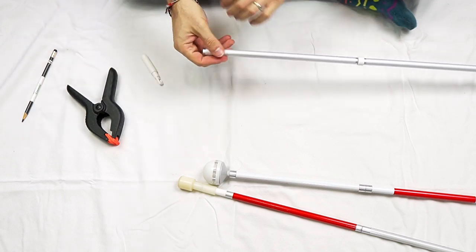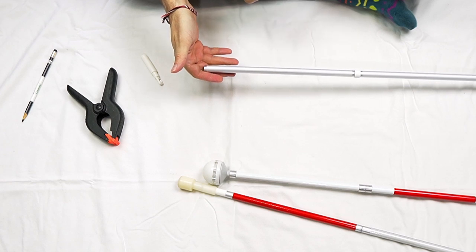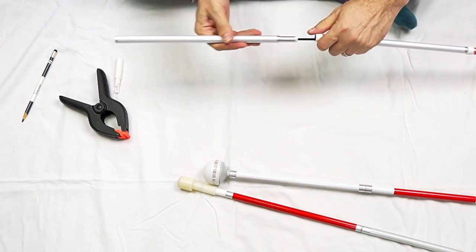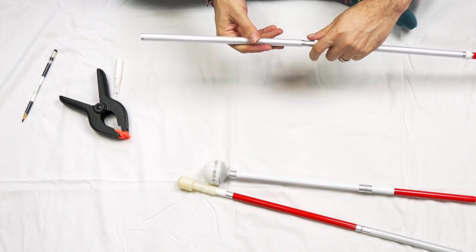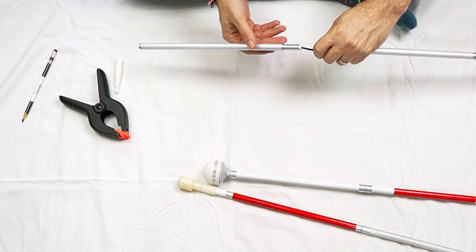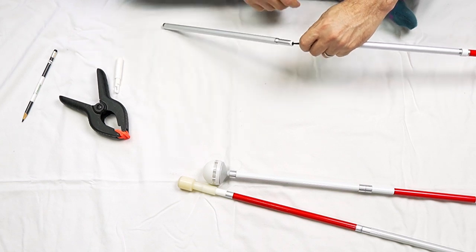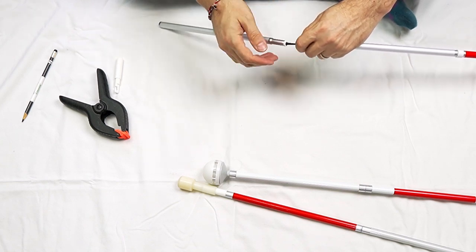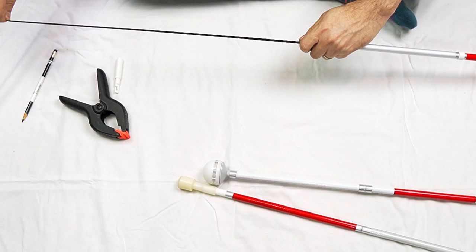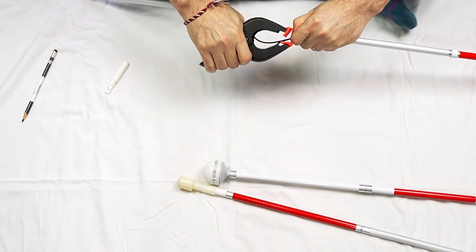What happens if you do accidentally let go of your cord and it retracts into the cane? Or say your cord breaks at the end here and you need to retrieve it. So we're just going to pull it out. And if it has gone all the way through this first section, that's fine. This one, because of that knot, cannot go all the way through the first section. So we're in luck here. If it has, you just want to simply feed it right into the base of the first section and then continue like this. So we want to pull out a generous amount of cord. So I'm really stretching it almost to the max and I'm going to pinch it and use my clamp.